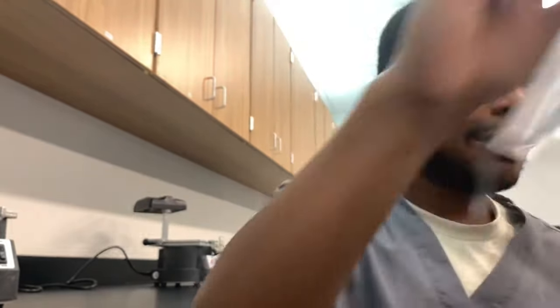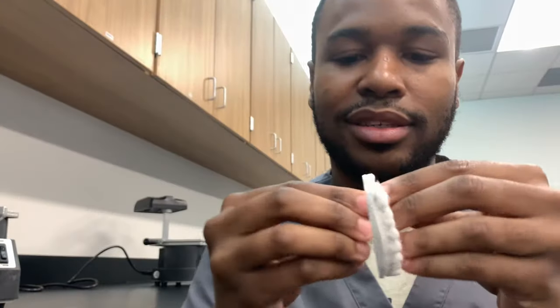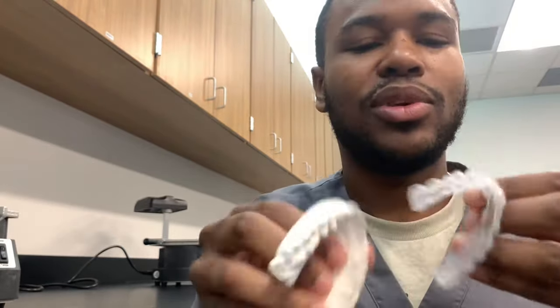This one is more stiff than the last material — more sturdy. This is mandibular, right? Alright, maxillary. It's definitely not as good as the first one I did — it doesn't even cover all my teeth.